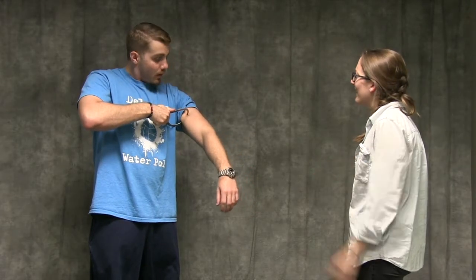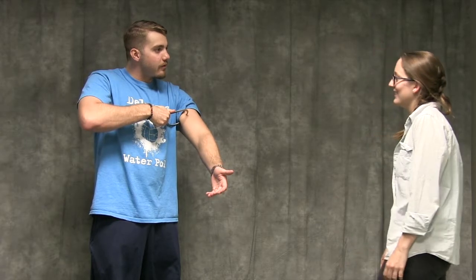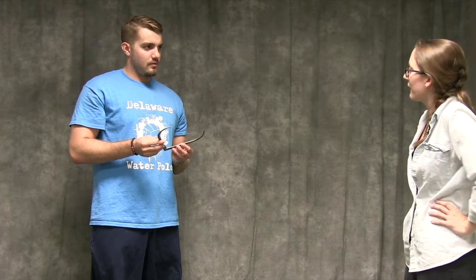What are you doing? Trying to calculate my body fat percentage with these skin calipers here. Why don't you just use ADP, or air displacement plethysmography?